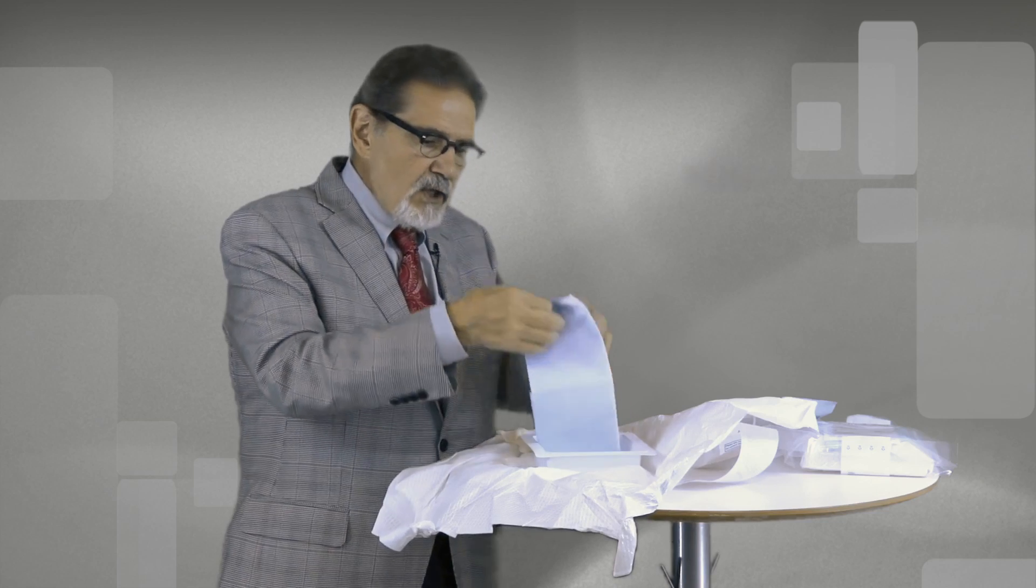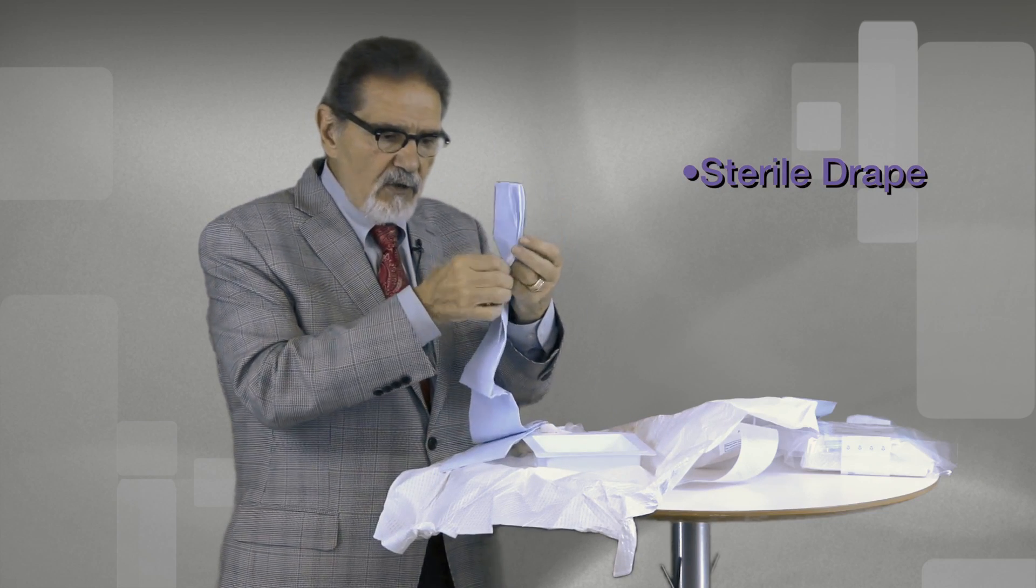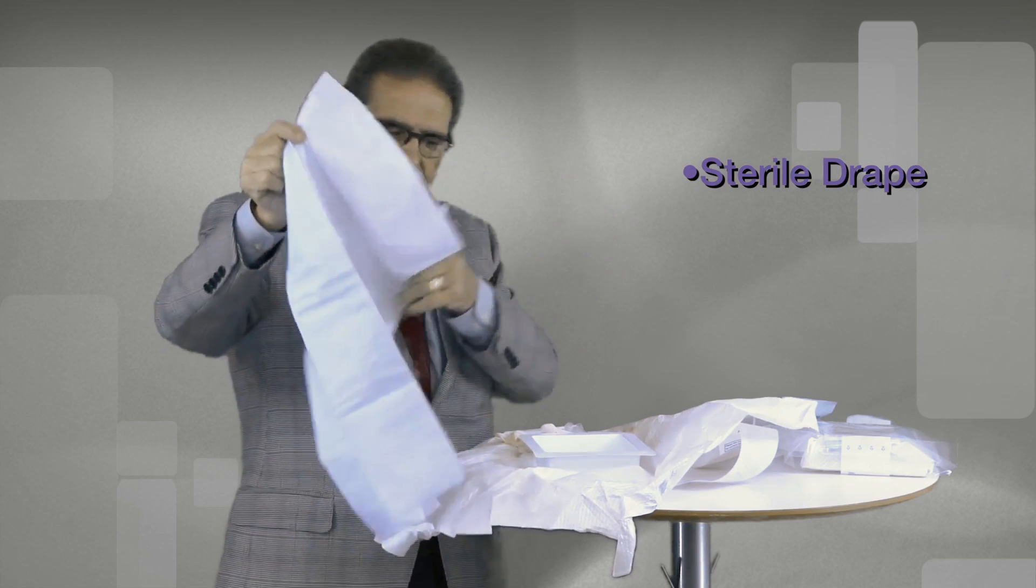And in addition to that, you've got a sterile drape to place across the patient so that you have the capability now of doing this entire procedure in a very sterile manner and therefore eliminating the possibility of post insertion inflammation and infection.